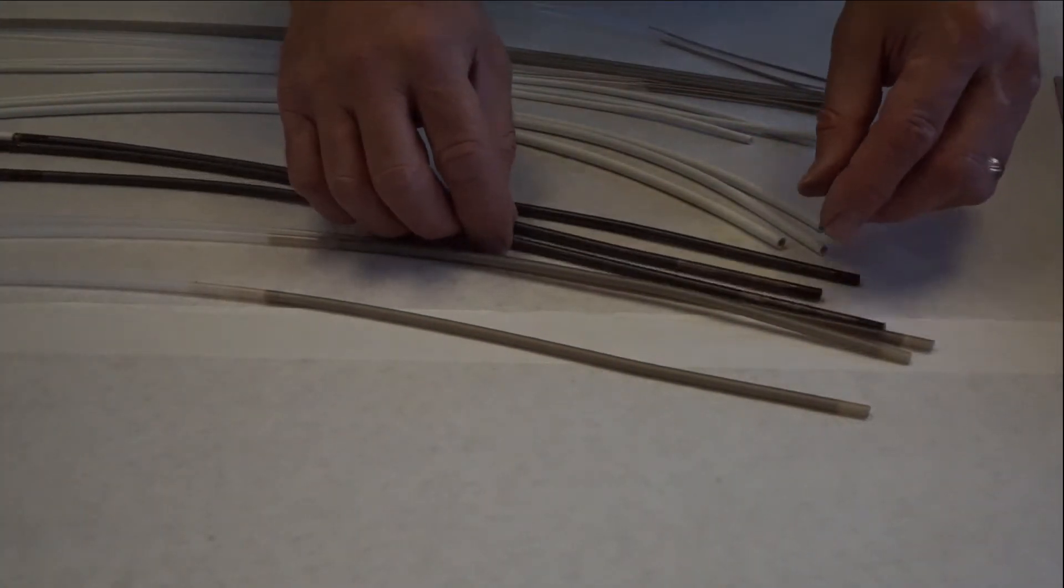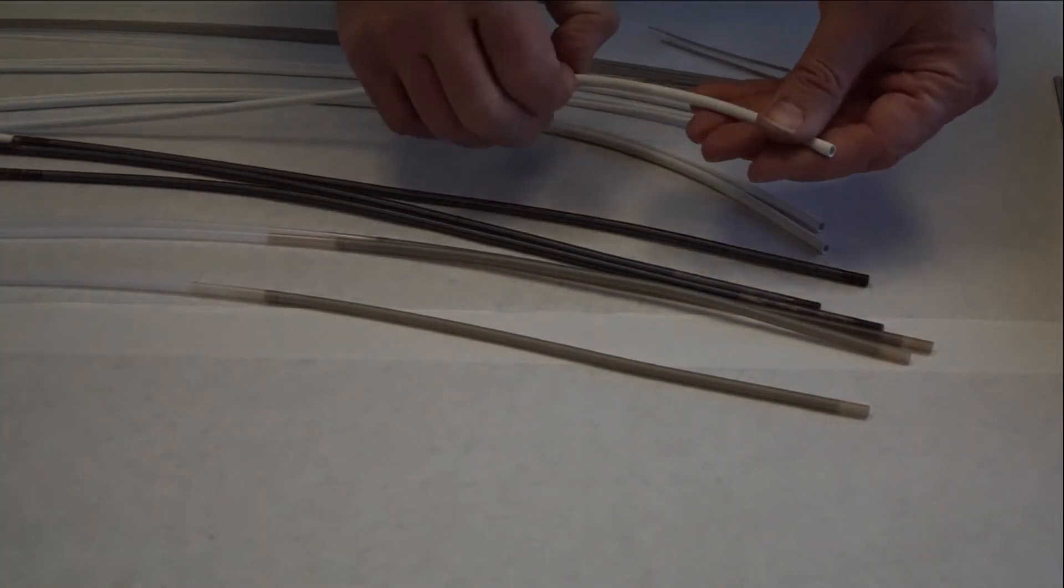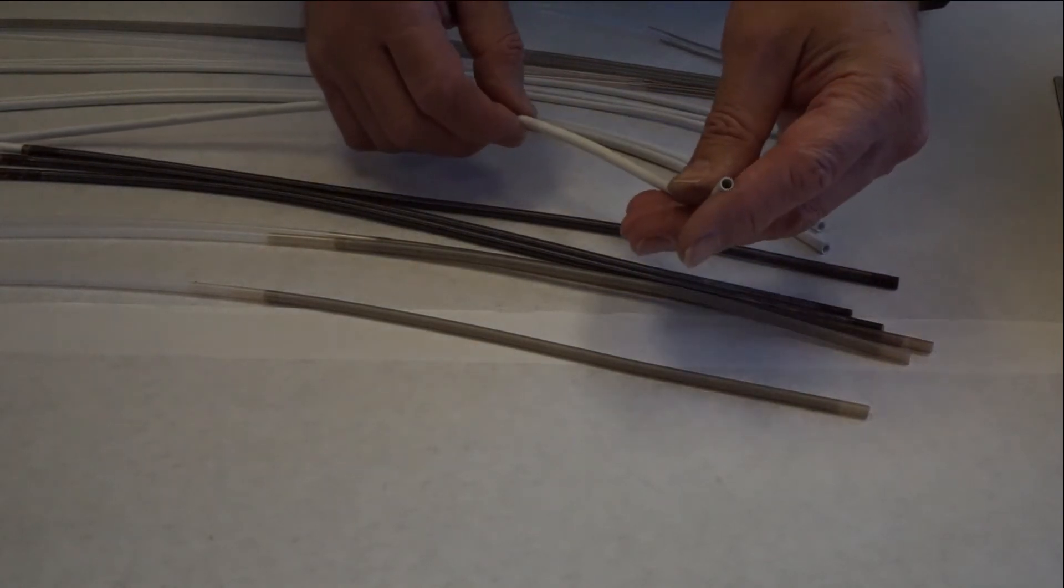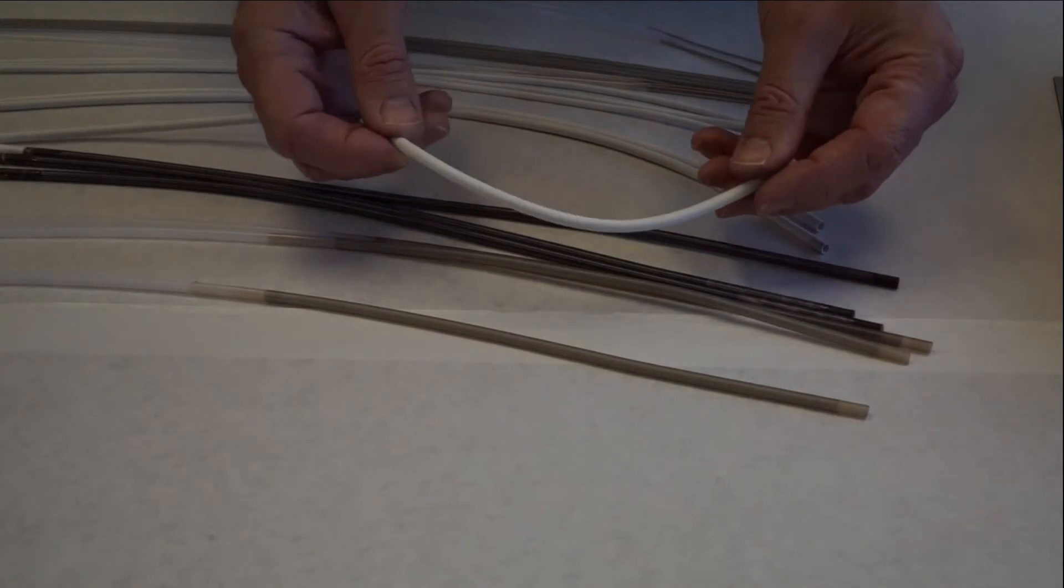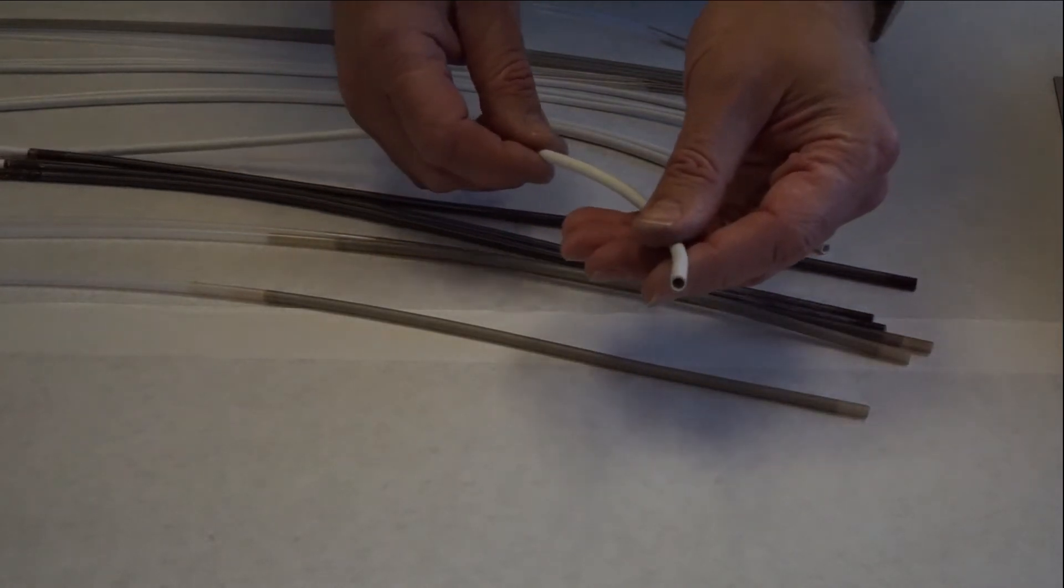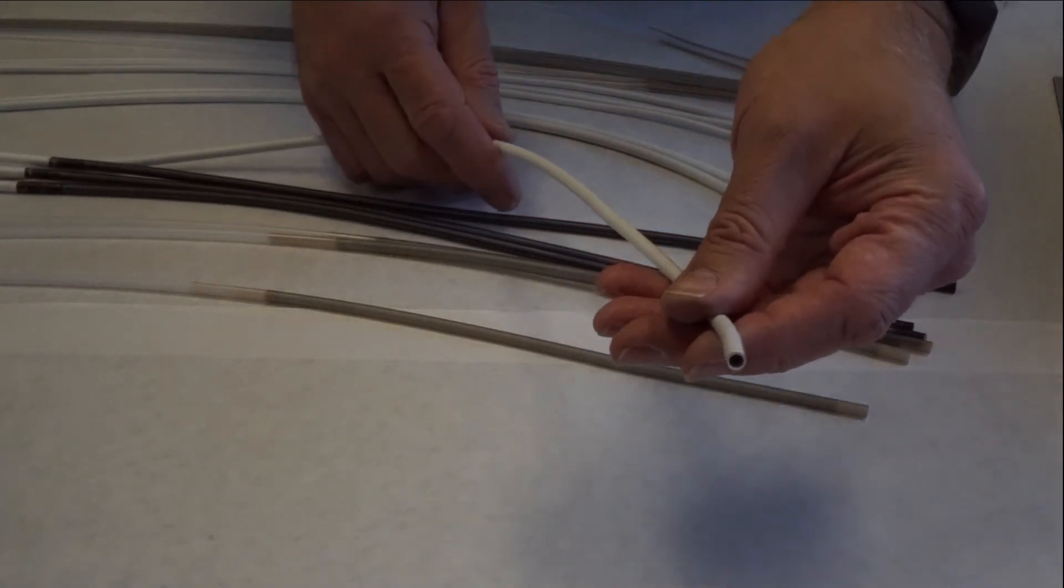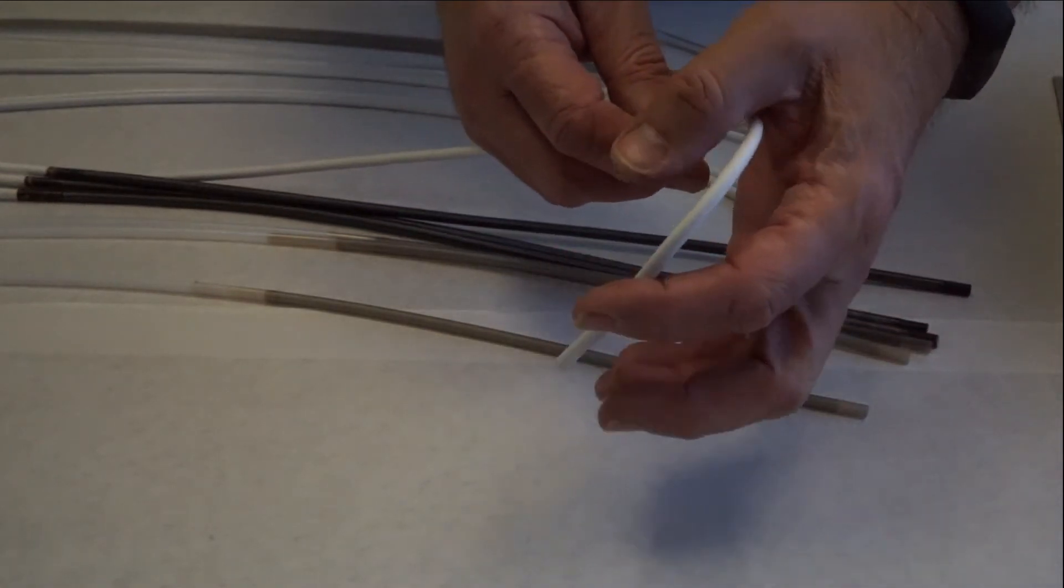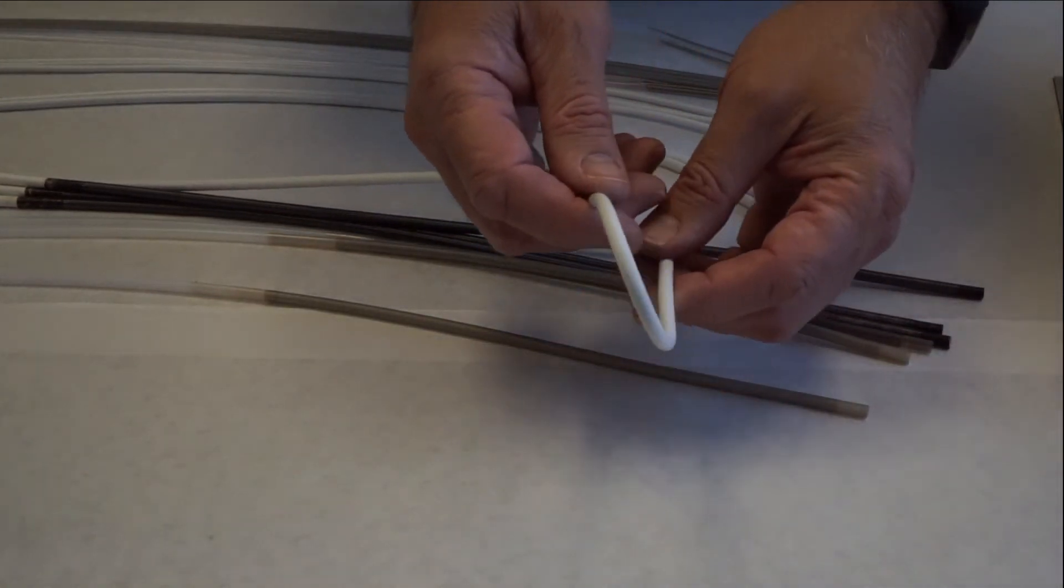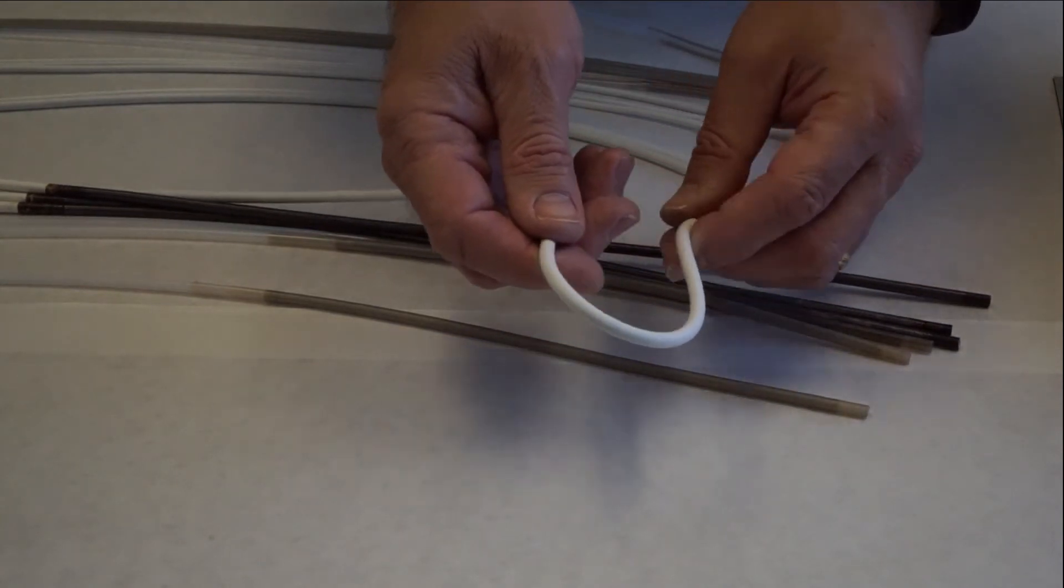Our third type of channel is the three-layer laminated biopsy channel without a wire wrap. This channel is made of an ePTFE core with a fluoropolymer wall and an ePTFE casing. This is a new iteration of an older design that was made of pure ePTFE which previously had been found to still have leakage issues.